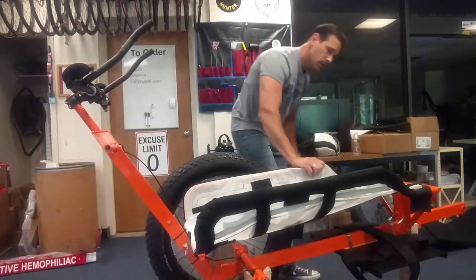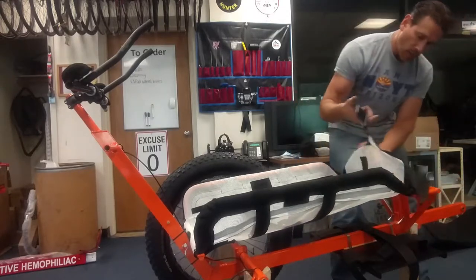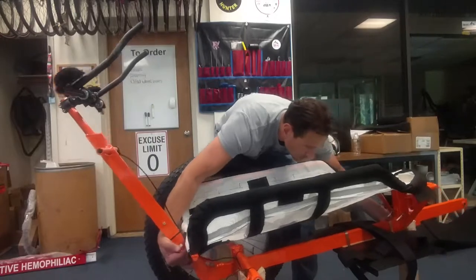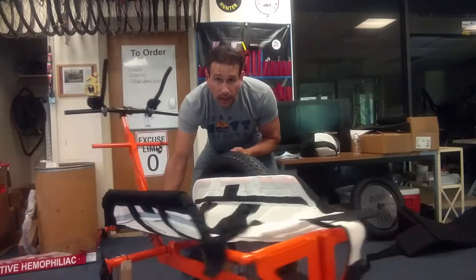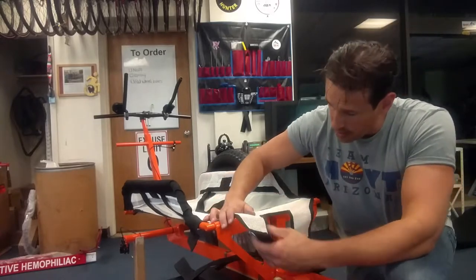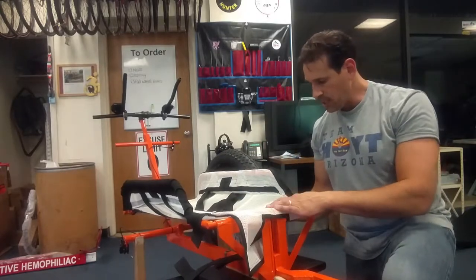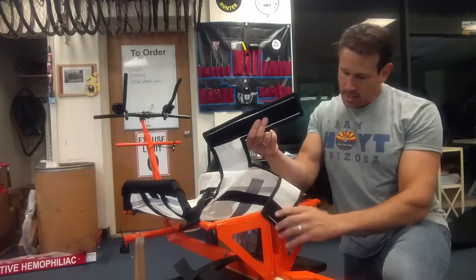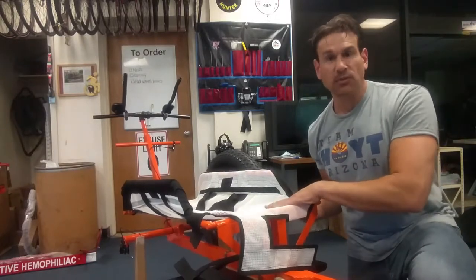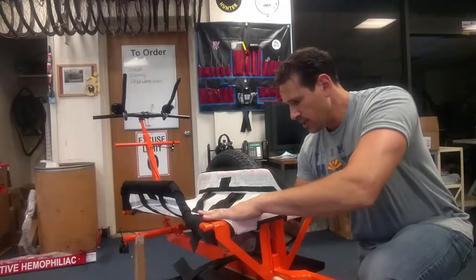On the other side, we're going to do one piece that's going to feed through here. There are triangular pieces — right, I think you'll be able to see it — right here. So you can feed this through here like that, and this one through here like that. This L-shape goes last. This first piece goes in first. You're going to Velcro to the strip underneath — you'll feel it, it'll stick. And then you're going to take this piece and it's going to connect everything together underneath here.